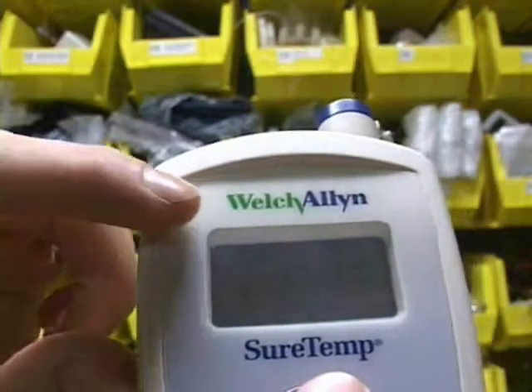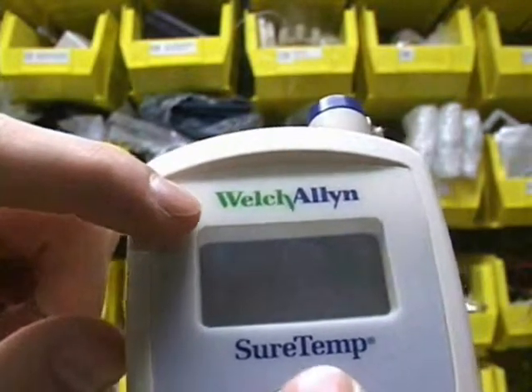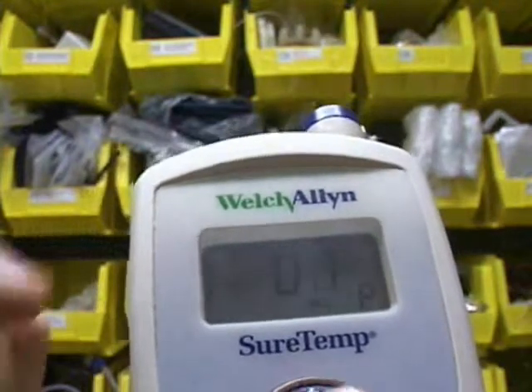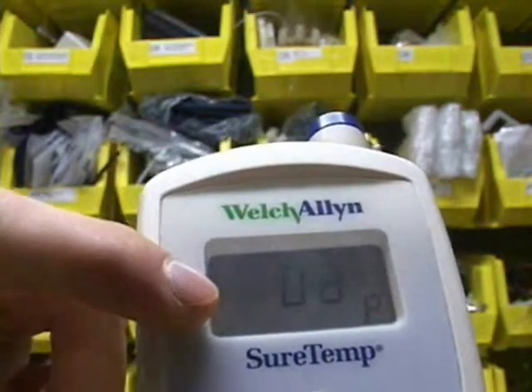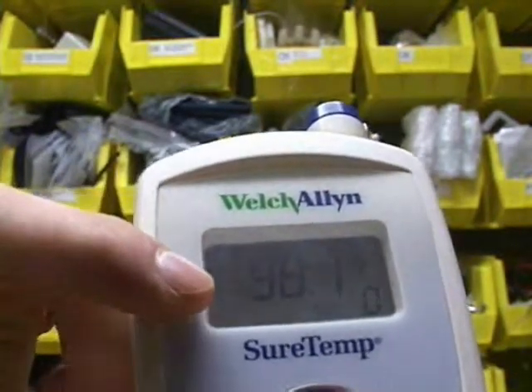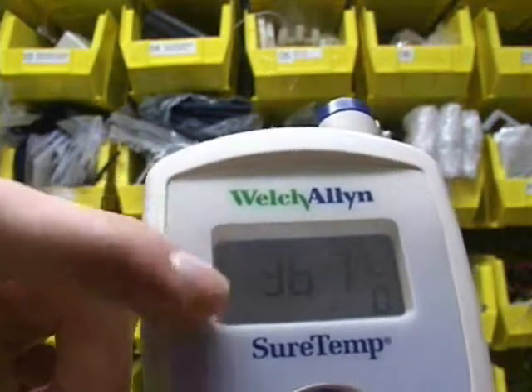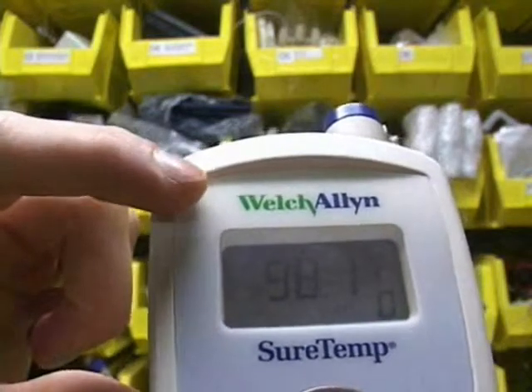In this case, if we want to turn the device on, we provide a very slight tap in this location. And if you want to see the last temperature, press the mode button — in Celsius, press it again, back to Fahrenheit — and then we might turn the device off.